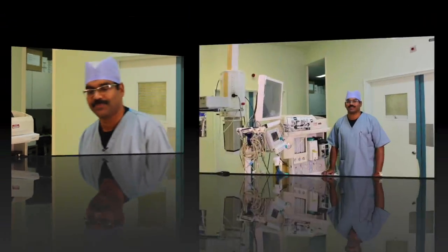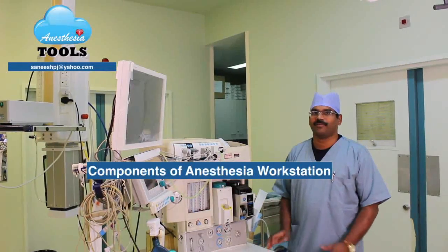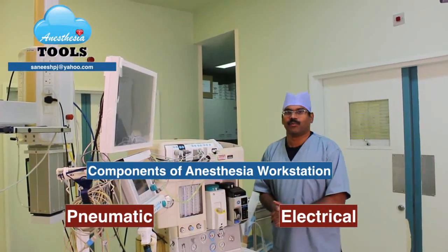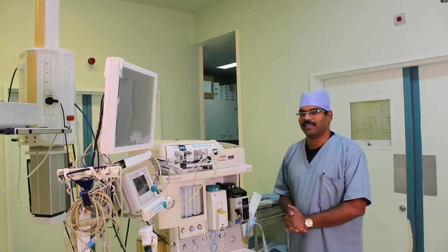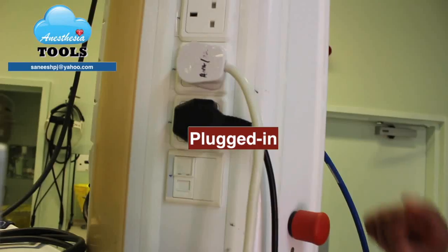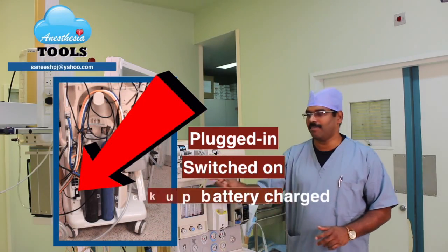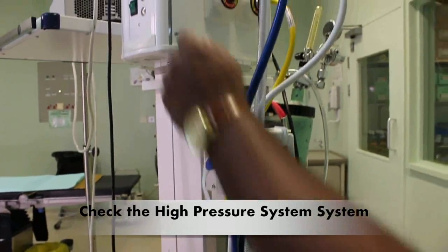Come, let us see what our routine anesthesia machine checklist procedure is. Our modern anesthesia workstations have pneumatic components as well as electrical components. So our machine checklist starts with making sure that our machine is plugged in, switched on, and adequate battery backup is ensured.